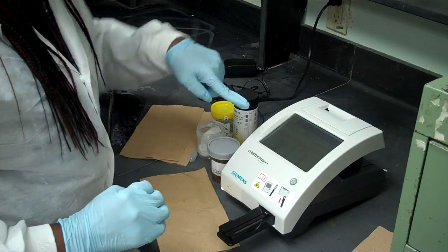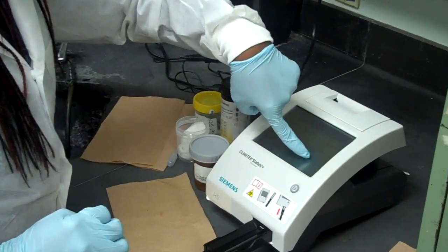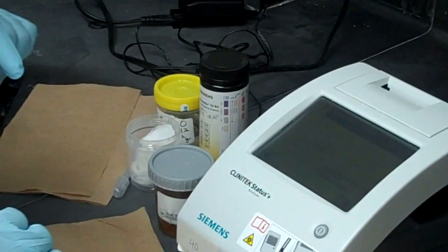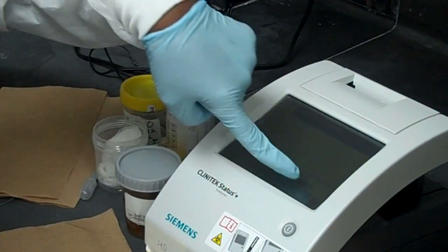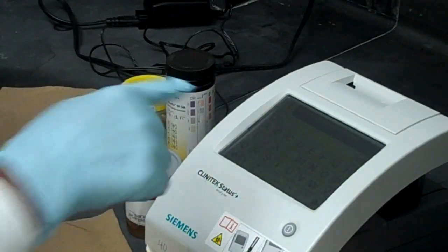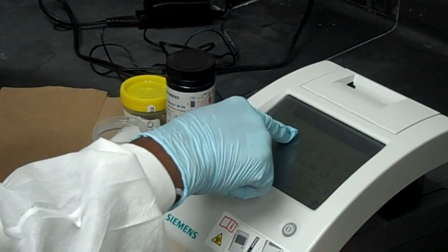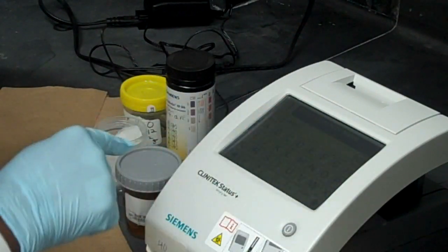Now we're doing strip test. So we select strip test. Now it says enter new operator's name which is us. So we select that. And you enter your patient. Press enter.